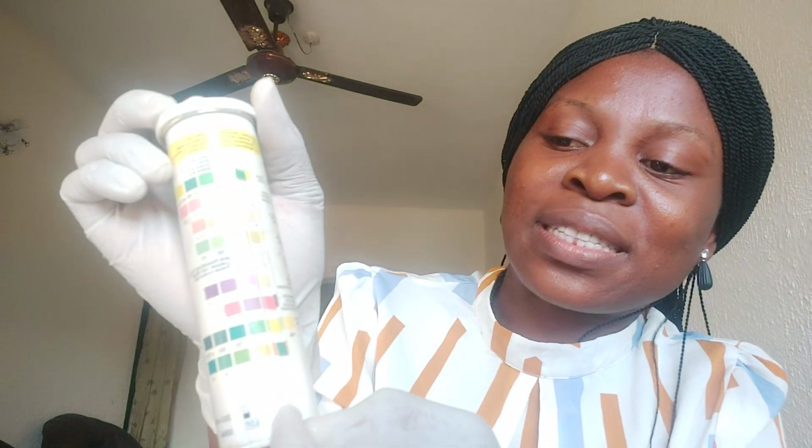Then the third one that is pink is ascorbic acid. You can see it's not the same as the first one in the row. It matches the third one. Ascorbic acid is vitamin C. If you consume vitamin C, maybe pineapple, orange, anything that contains vitamin C, it will reflect. So you can see that this person is consuming enough vitamin C. It's showing in this urine sample 1.